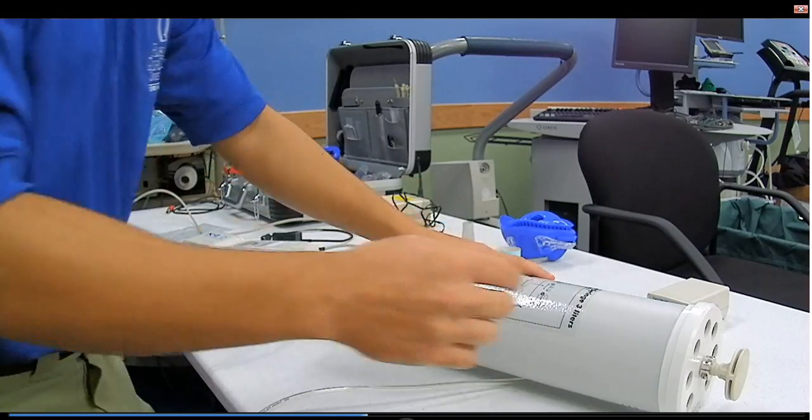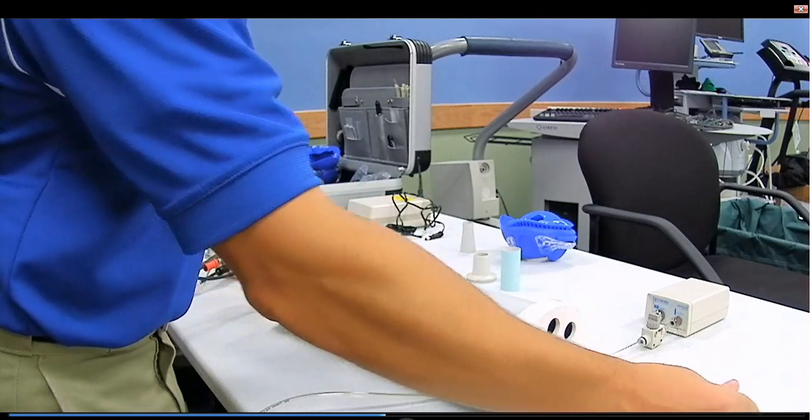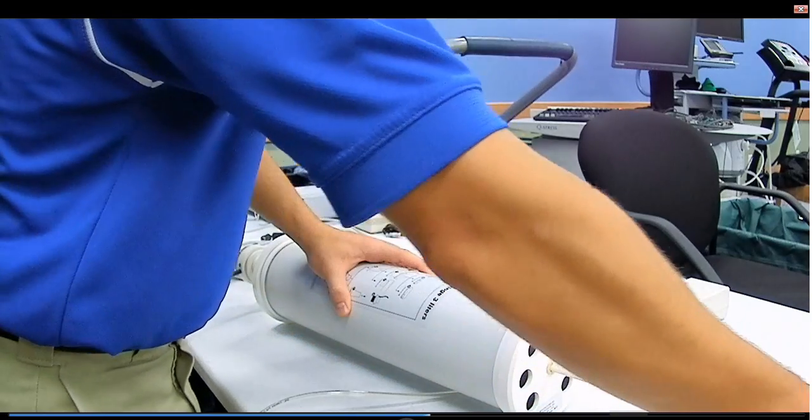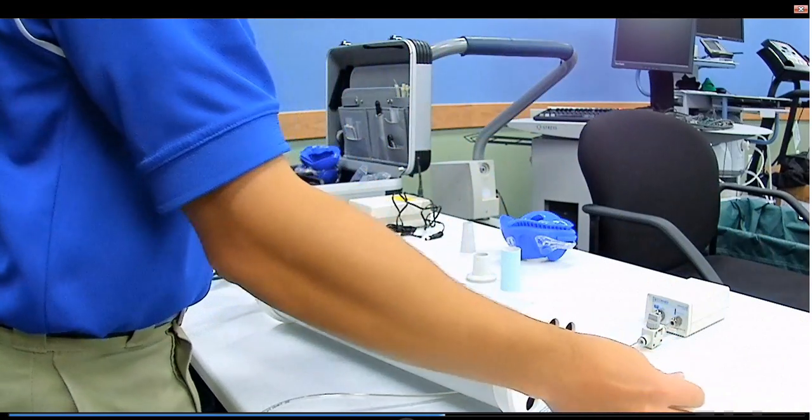You're going to come back over and you're going to pump the syringe. Easy few pumps in and out and it's going to calibrate for you.